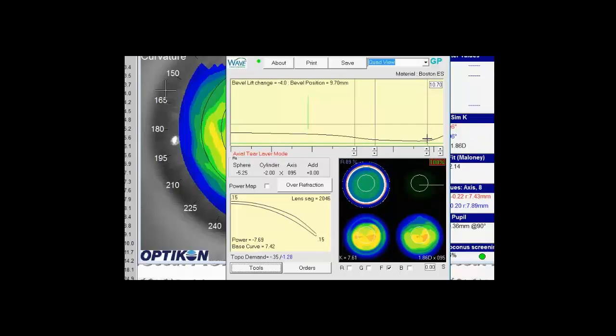And then I can just follow suit up towards the periphery of this lens. And a nice way to judge that change is you should have a nice even slope without too many jumps in there. And that will give you a steeper lens. Probably the equivalent of steepening up the lens about a quarter diopter.